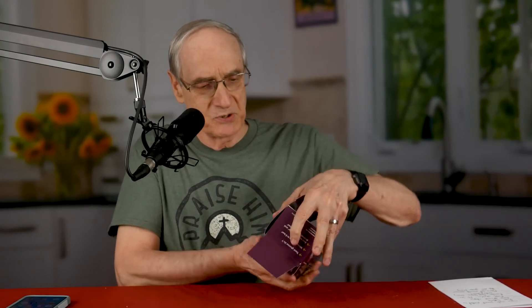When you open the box, you get two of these smaller boxes — so big box, two small boxes. Each small box includes the applicator and the sensor, and each one is supposed to last you for 15 days.